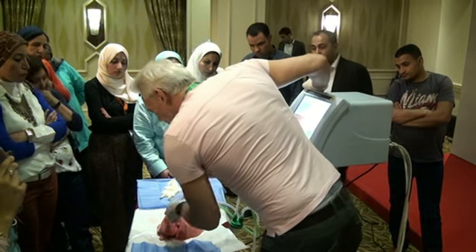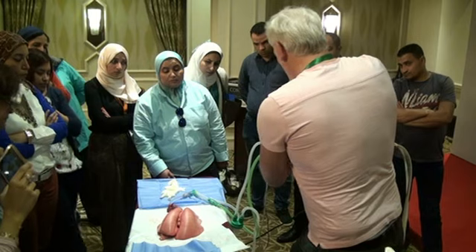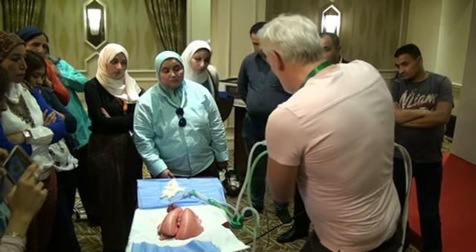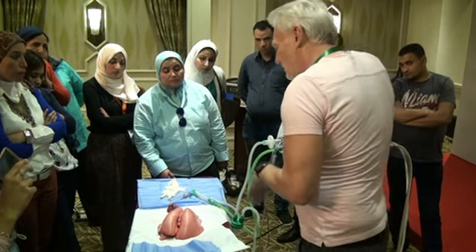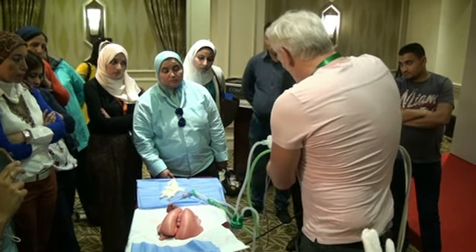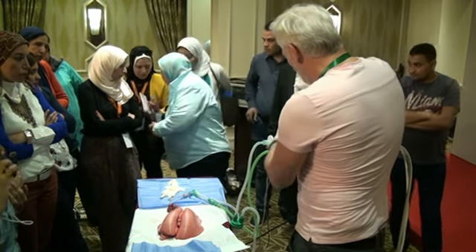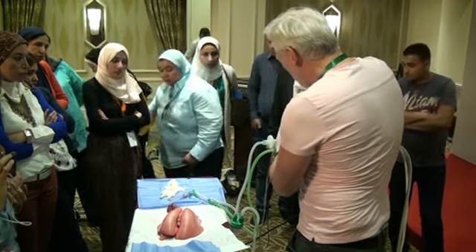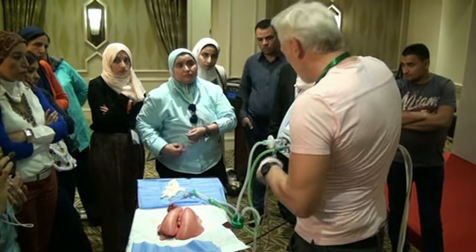And you'll see far more pink areas appearing on the lung because you've lost your PEEP. Even though I've dialed in 0, it's managing to exert a little bit of PEEP itself. The most important thing, and we'll look at this pressure volume curve in a second, is to realise the difference between your PIP and your PEEP.